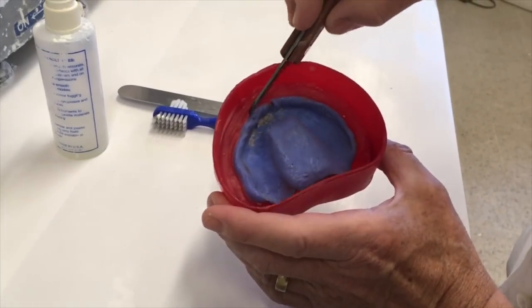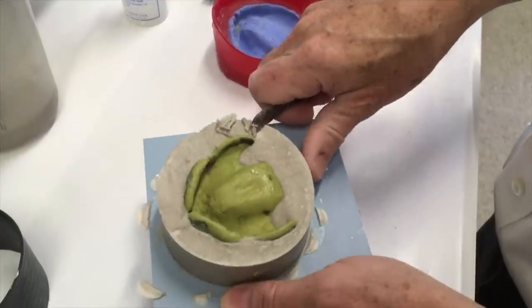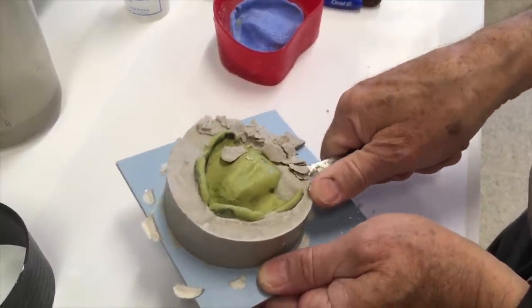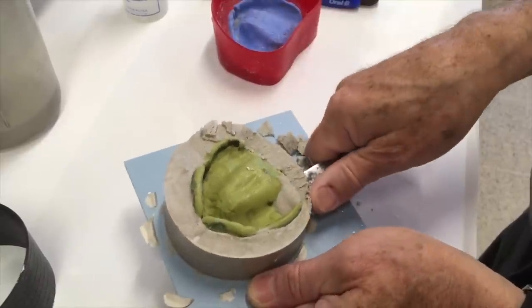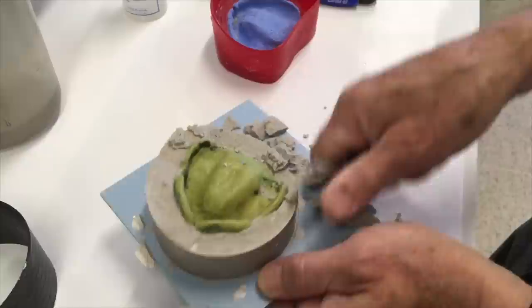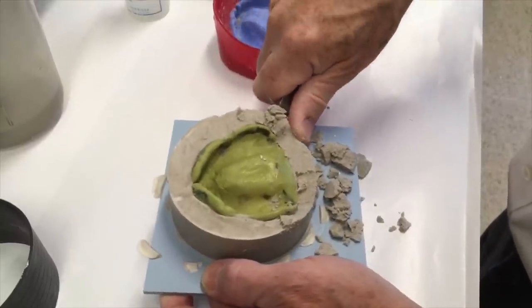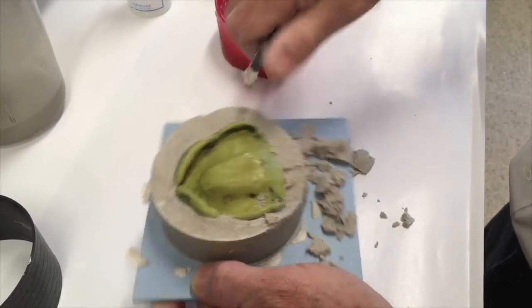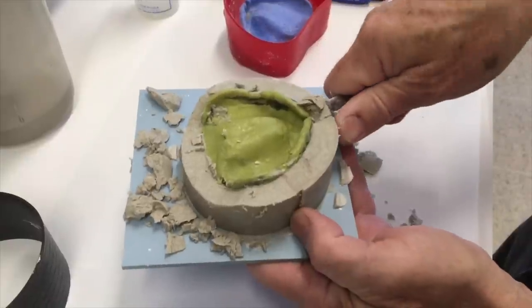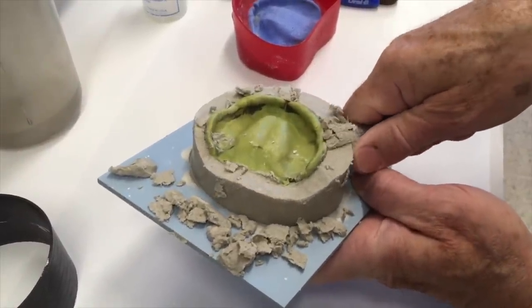The same way we would if we were doing it in wax. I'm going to take this where it ran in the back and where it's up a little higher in this area and scrape that off. Try not to dig into the impression material, but I want to fully expose this posterior. The mistake is to leave pumice in these hamular notches — if you do that then you don't have that in your cast, and that's a critical area. Those hamular notches have to be there in a good denture impression; otherwise you don't have a good posterior seal. When in doubt, expose too much — remove a little extra rather than not enough, and that's just going to leave us a little bit of stone to grind down, which we're going to refine anyway.